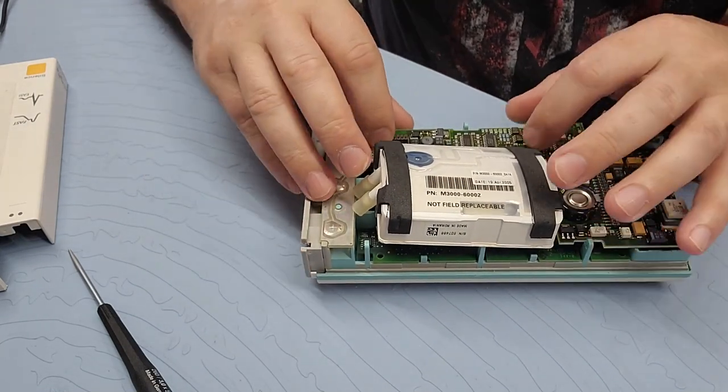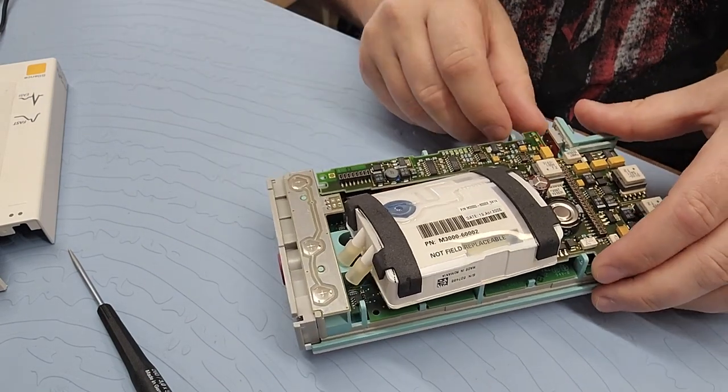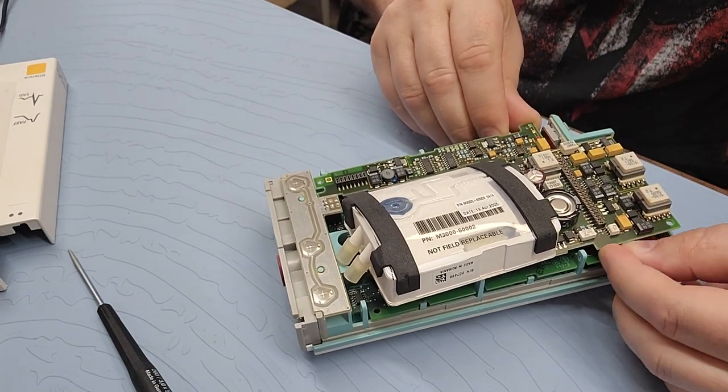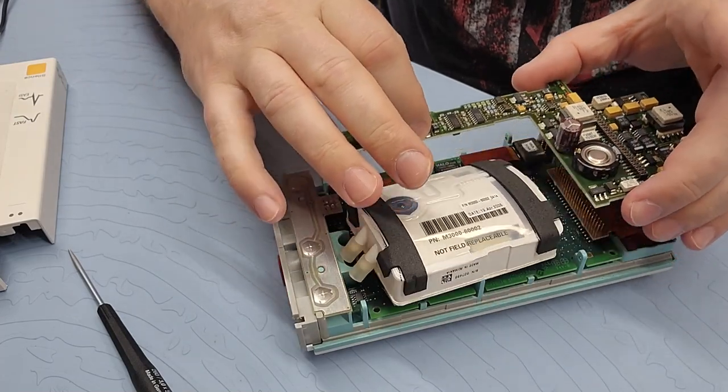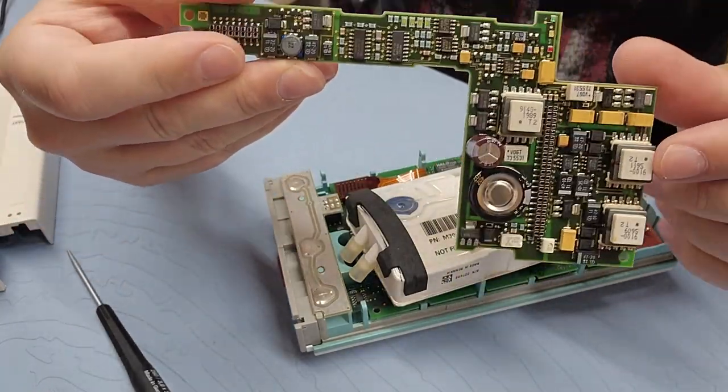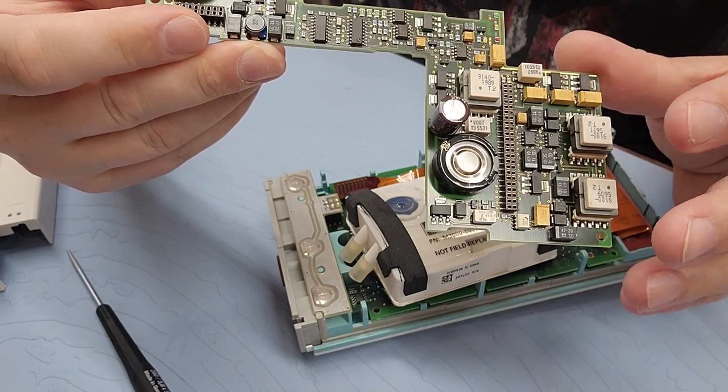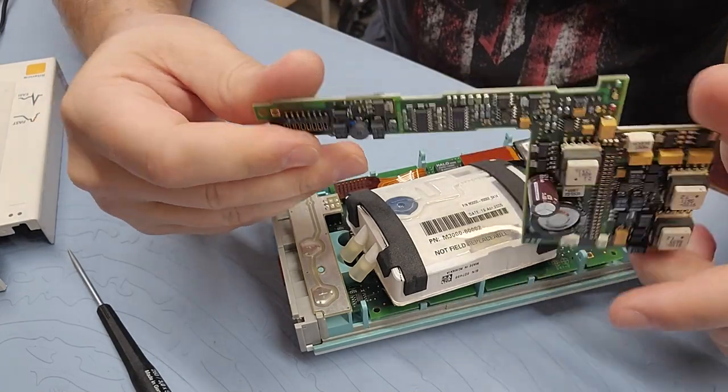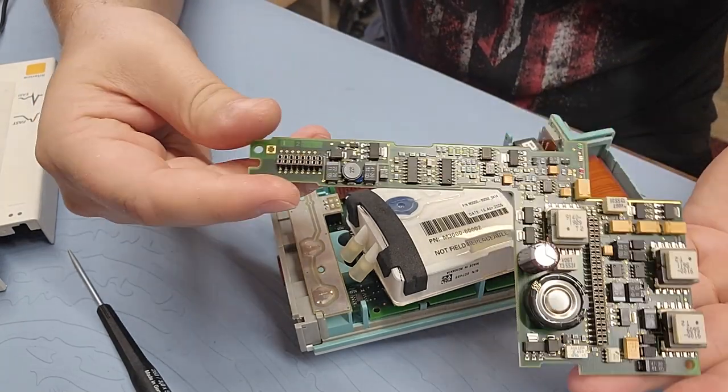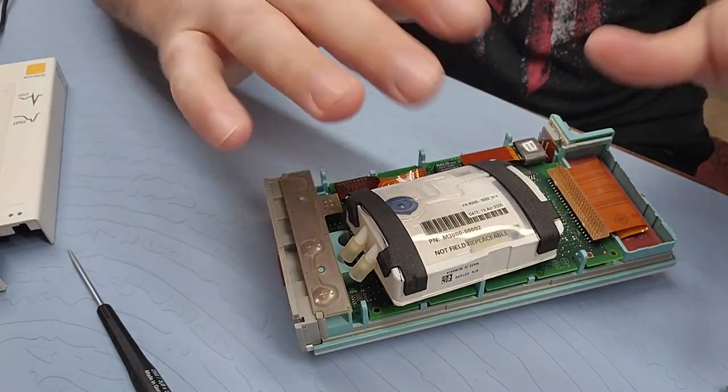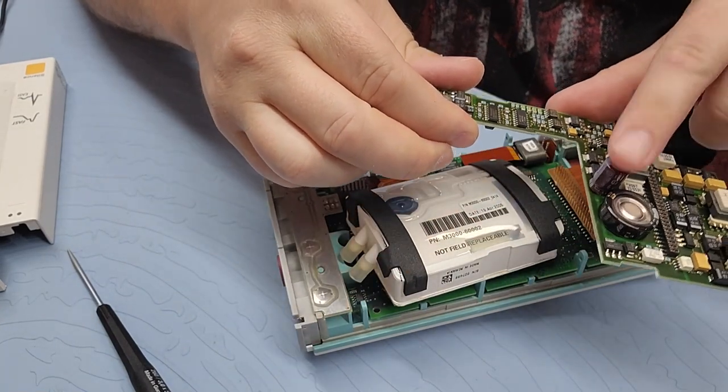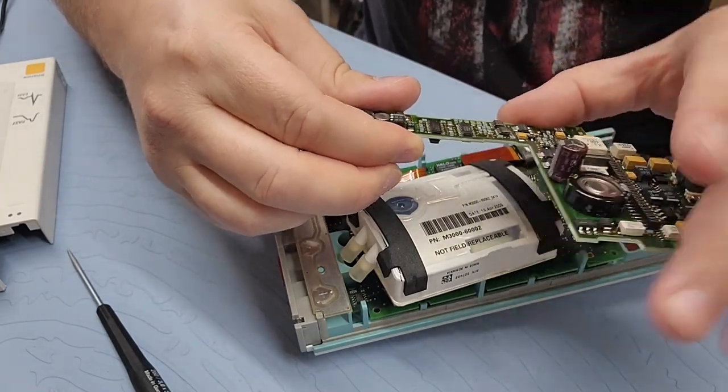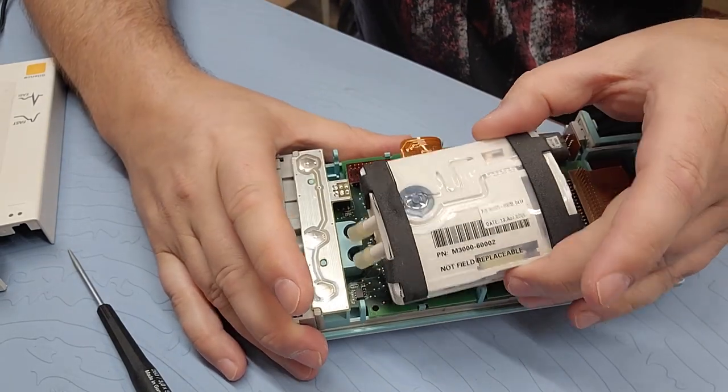Alright. So now I want to dissect these boards. See how I pull up this side right here really lightly. I'm going to separate. There we go. See how I'm using my fingers to create even pressure? And here is the first board. Now this one here looks like a power board. You can see that I've got some transformers and I've got some power regulation. Now this one here looks like some sort of power distribution board. I don't see any real CPU on there. So if I had a problem with this thing not powering up, that would probably be the board I would change out.